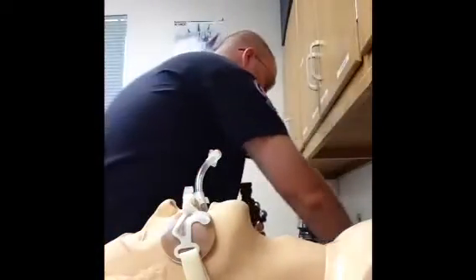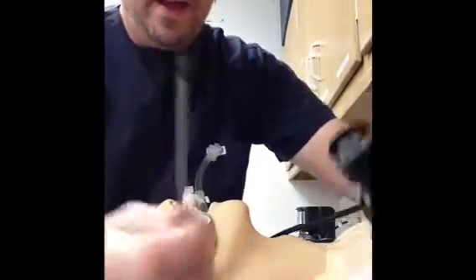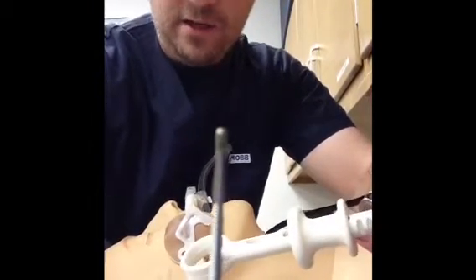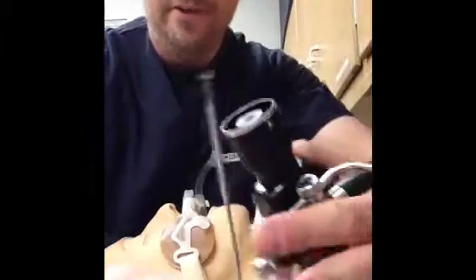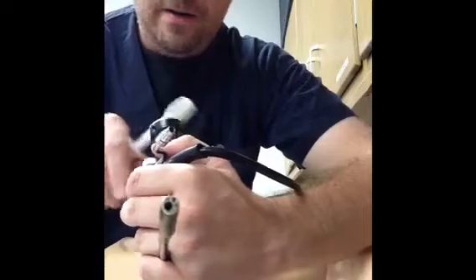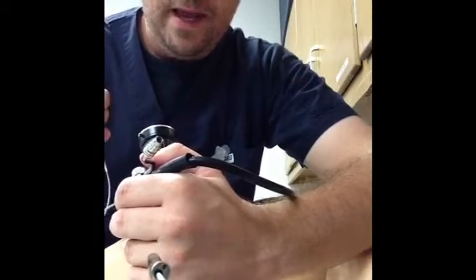I can also insert different instruments. This happens to be what's known as a cytology brush type of instrument, and this allows you to collect samples if you want to biopsy lung tissue, or even if you have foreign bodies or mucus plugs in there, this allows you to take them out. It has a little clamp on there that opens and closes. Some of these have little brushes, some have little suction catheters, so they come in all kinds of shapes and sizes. Basically, you simply insert this in here, and you'll see it come out of the end — then you can go ahead and collect a sample, pull it back out, and you have your sample.